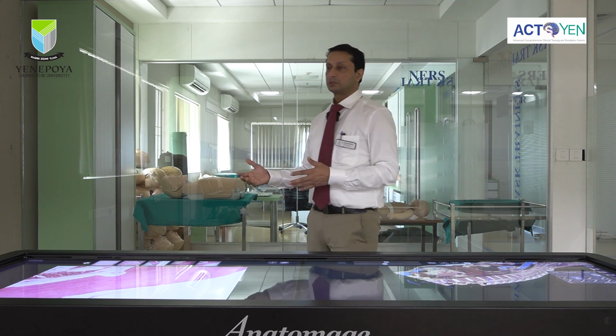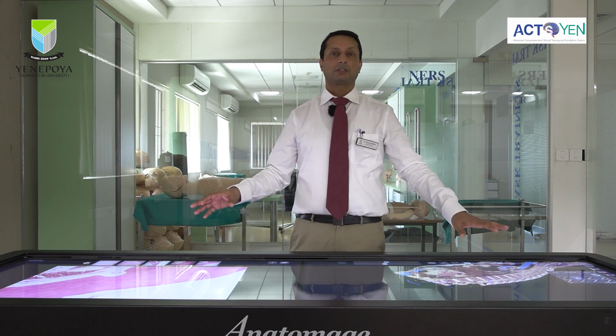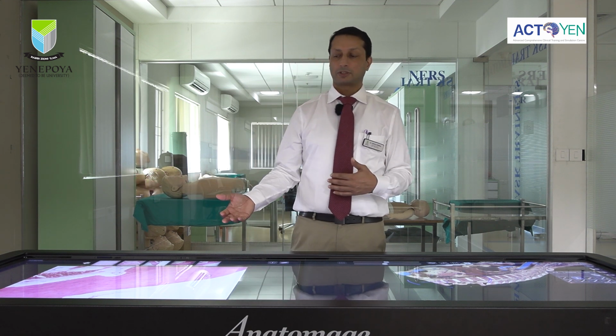And then using the DICOM files, which I usually use for our postgraduate students, we can teach them how the pathology is. Suppose you have a posterior dislocation of the humerus, with injury to the proximal aspect, the head of the humerus, and the structures damaged there. We load this DICOM file into this, and we can display the normal anatomy on one side and keep the pathological one on the other side, compare them, and show them to the students to understand the pathology better. That way this can be used for our postgraduate students also.